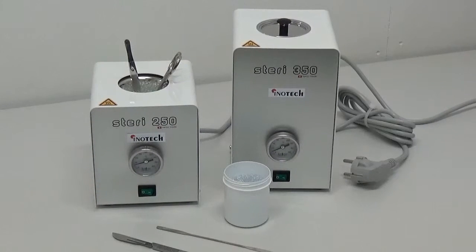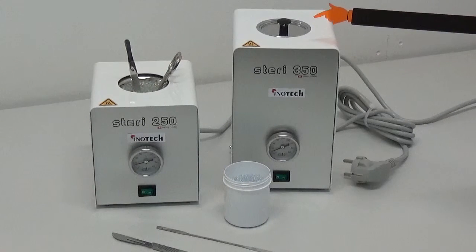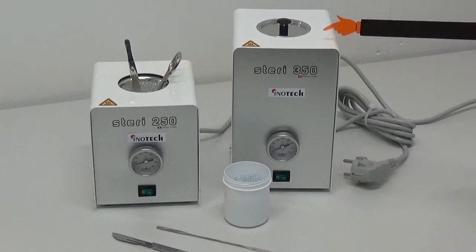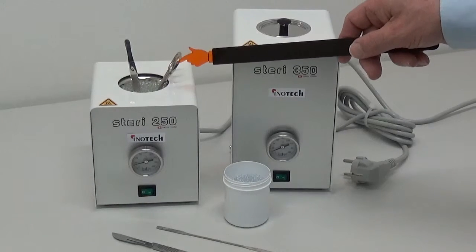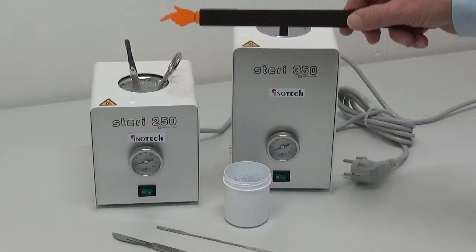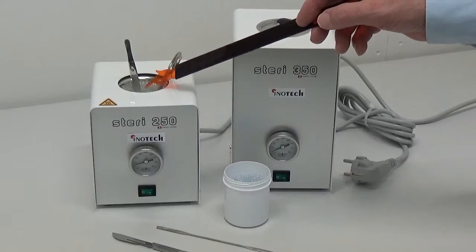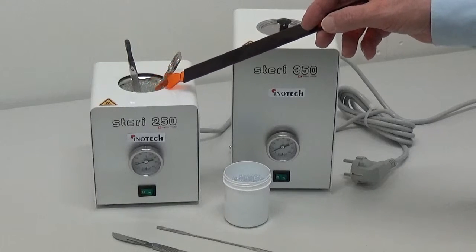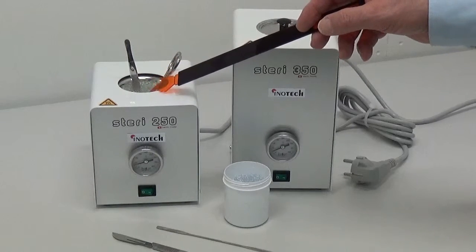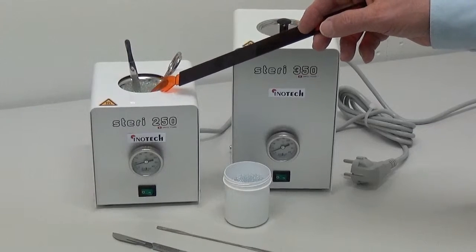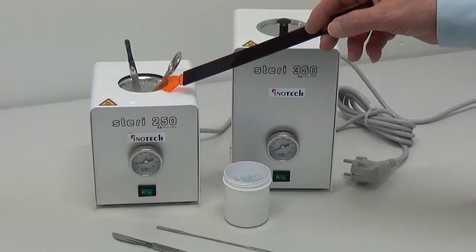In principle, InnoTech sterilizers are metallic boxes well insulated with a heating mantle inside and a sterilizing well filled with glass beads. These beads are heated to 250 degrees Celsius.